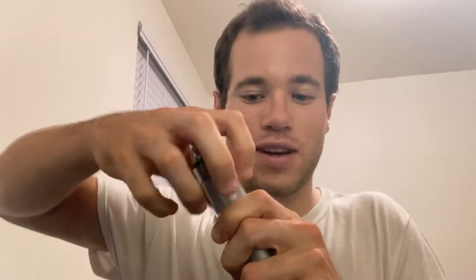In this video we are going to be taking a look at the ophthalmoscope. What you get typically is a box that looks like this — a pretty standard issue thing. Inside the box you have the main component and two attachments. This one is the otoscope, which we'll talk about later, but this one is the actual ophthalmoscope.